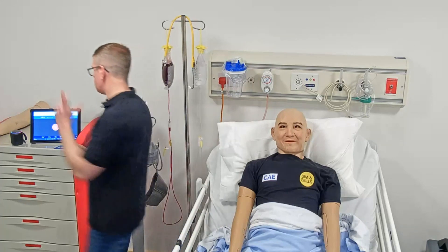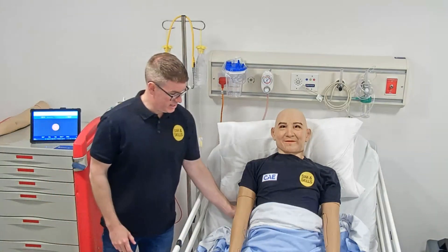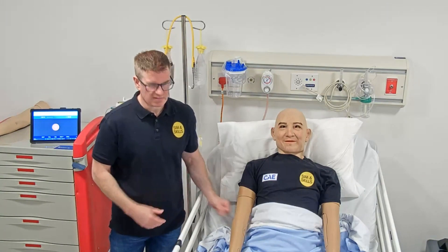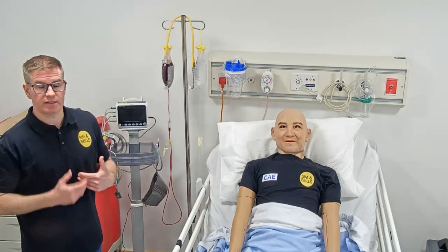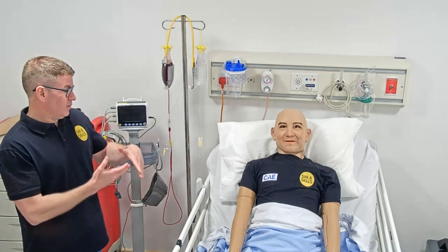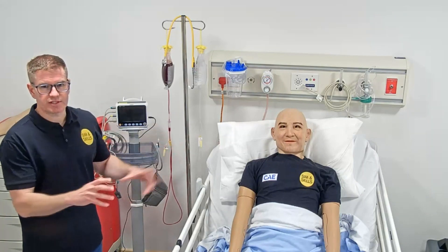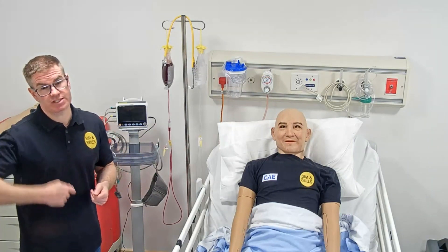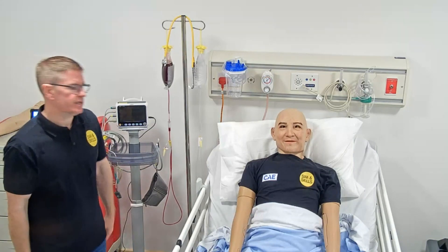I'm just going to grab my Bluetooth speaker and just leave it here so the sounds are coming from the mannequin. What I'm going to do is introduce myself and just ask this patient a number of questions. This patient is obviously sat in bed in a hospital environment — ignore that for the moment — I just wanted to get a feel for how fluid the conversation is and how far I can go to help me practice my communication skills.